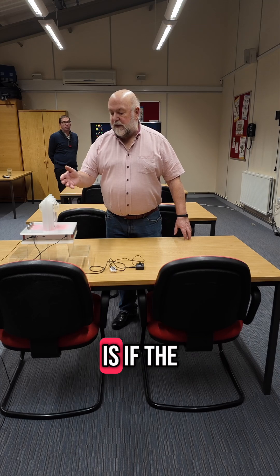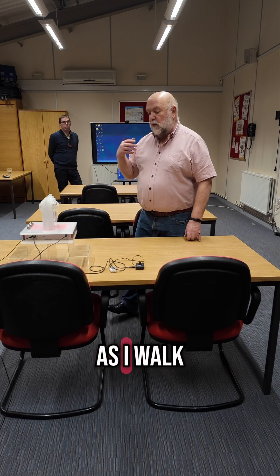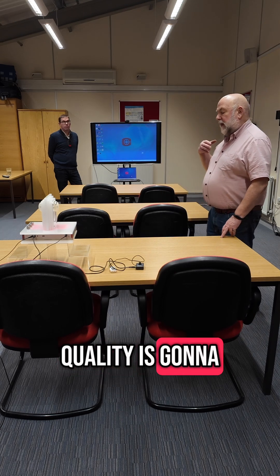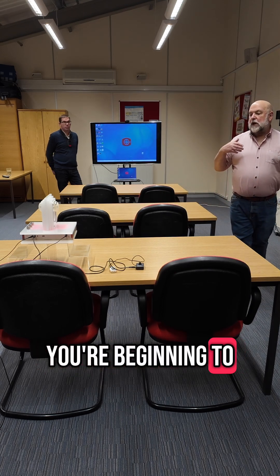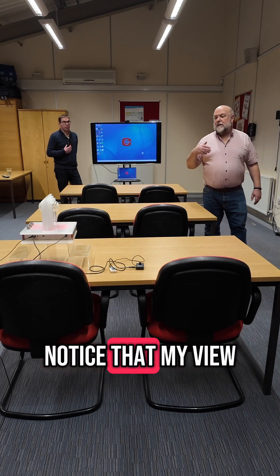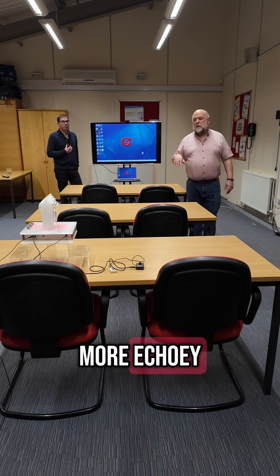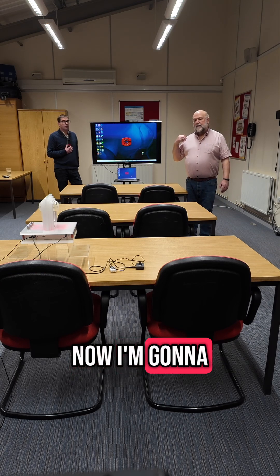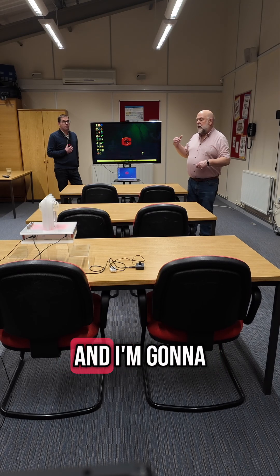The first problem is, if the student is sitting in the class, as I walk away the sound quality is going to get worse and worse. You're beginning to notice that my voice is getting a bit more echoey now. I'm going to go further down — I'm about two and a bit metres away at the moment.